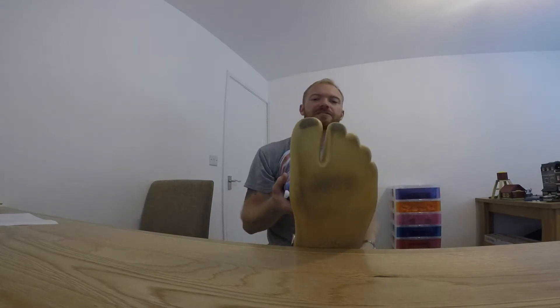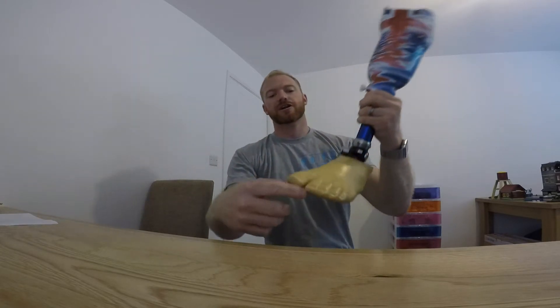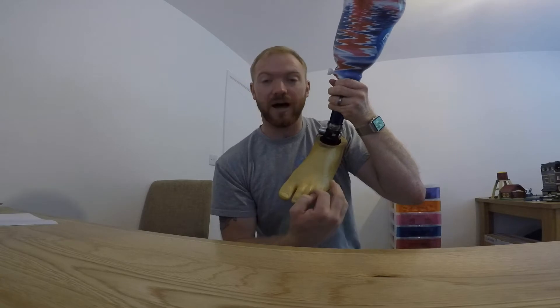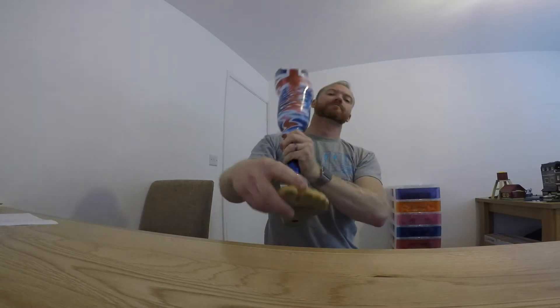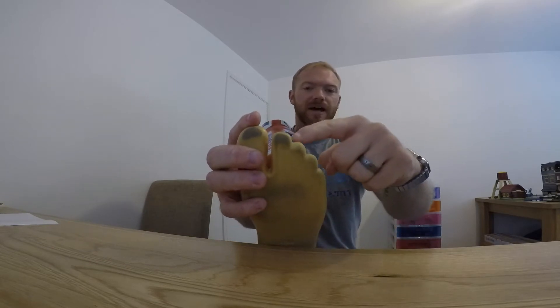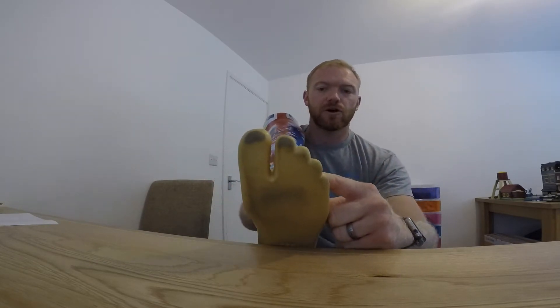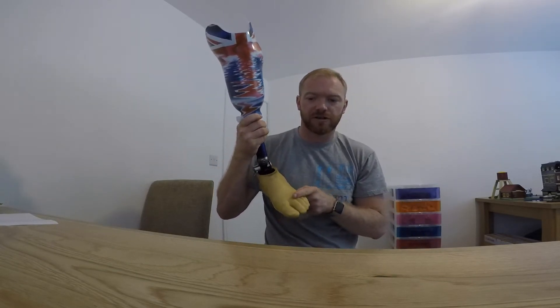The plan is to keep the existing big toe and the one next to it, cutting down the line of the toe where the next toe and the one after joins, so then you've got two individual toes. The plan then would be to chop off the three smallest toes, all the way to where the base of it, or where the foot starts.